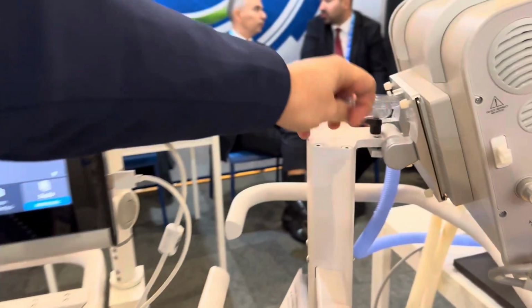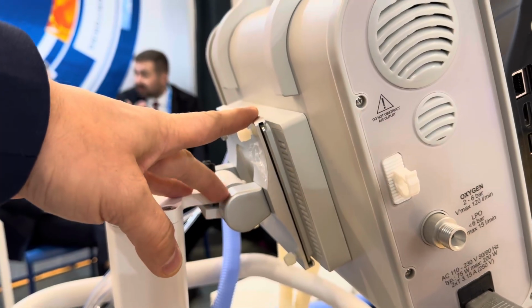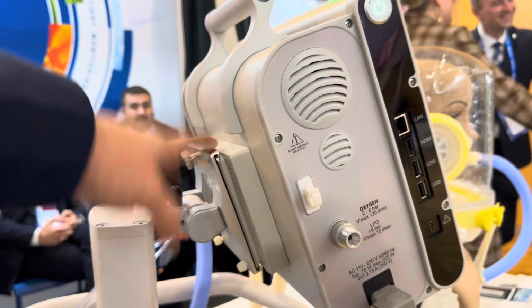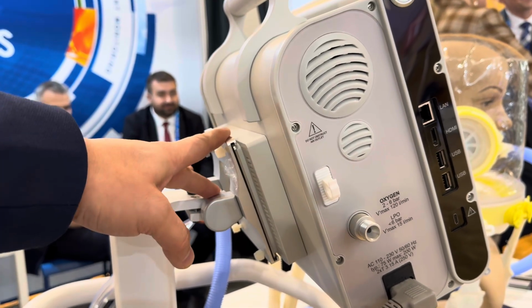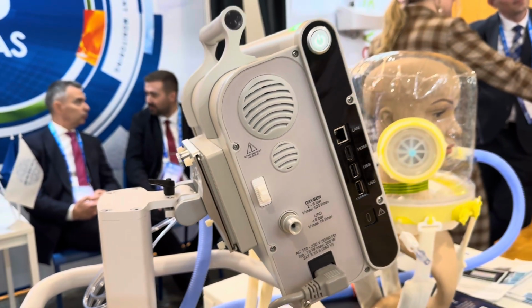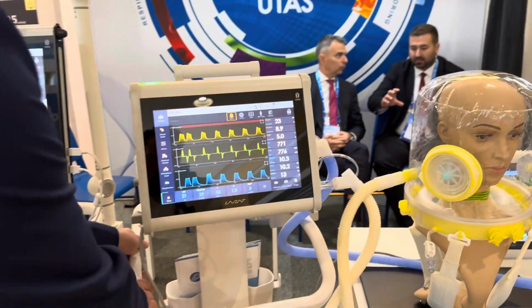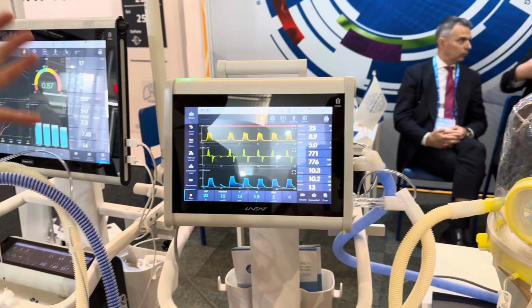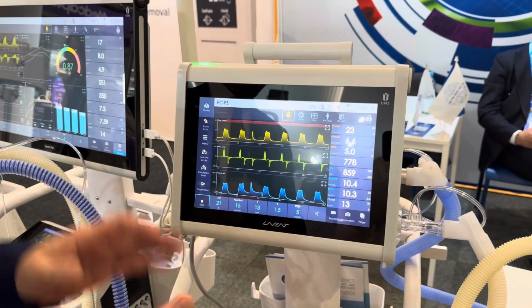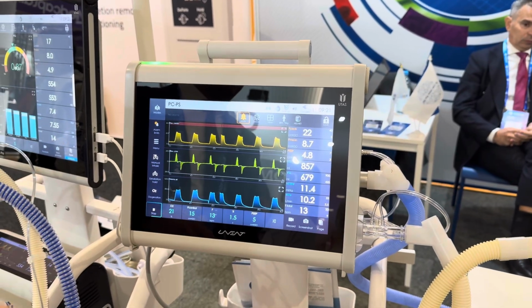The standard VESA mounting plate is suitable for different mounting solutions and can be mounted on the trolley, on the wall mount, on the ambulance mount, or even on stretchers. That's the universal mounting solution available in these ventilators. So this is a compact size, expert class machine with all necessary tools and ventilation modes for all ranges of patients and for any clinical case.